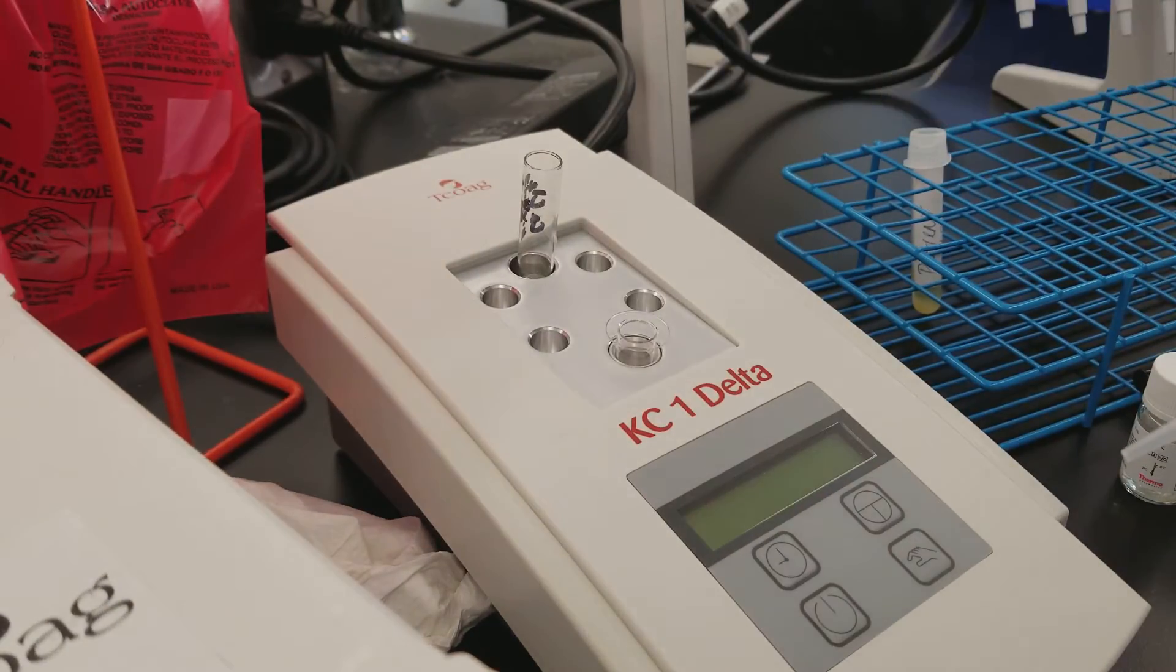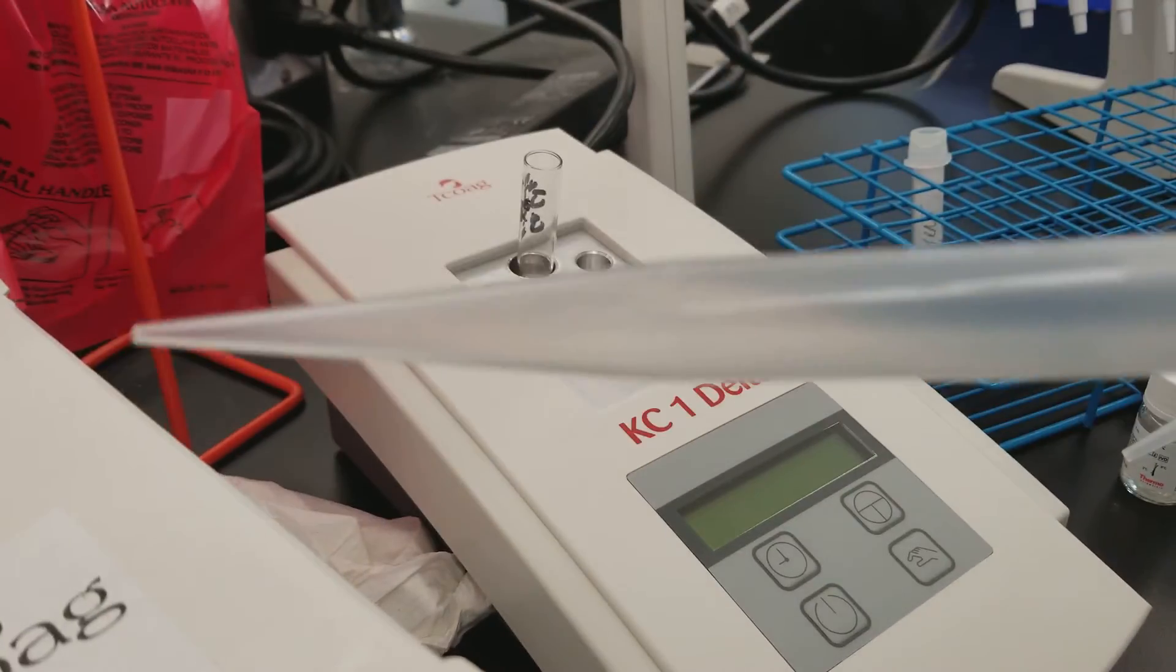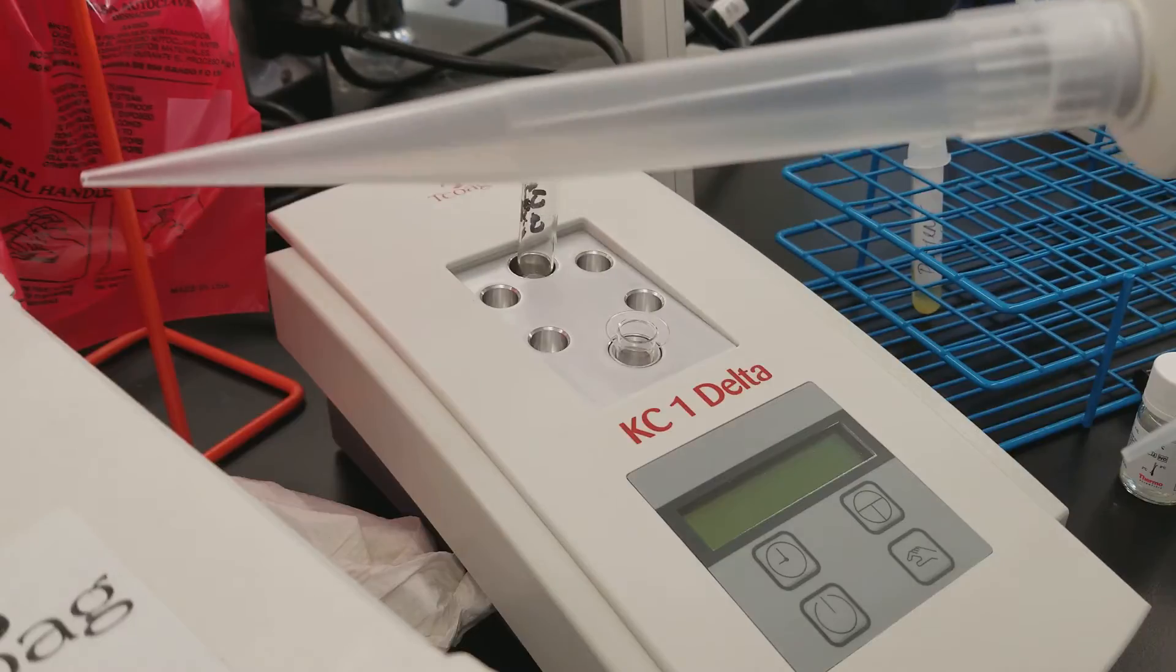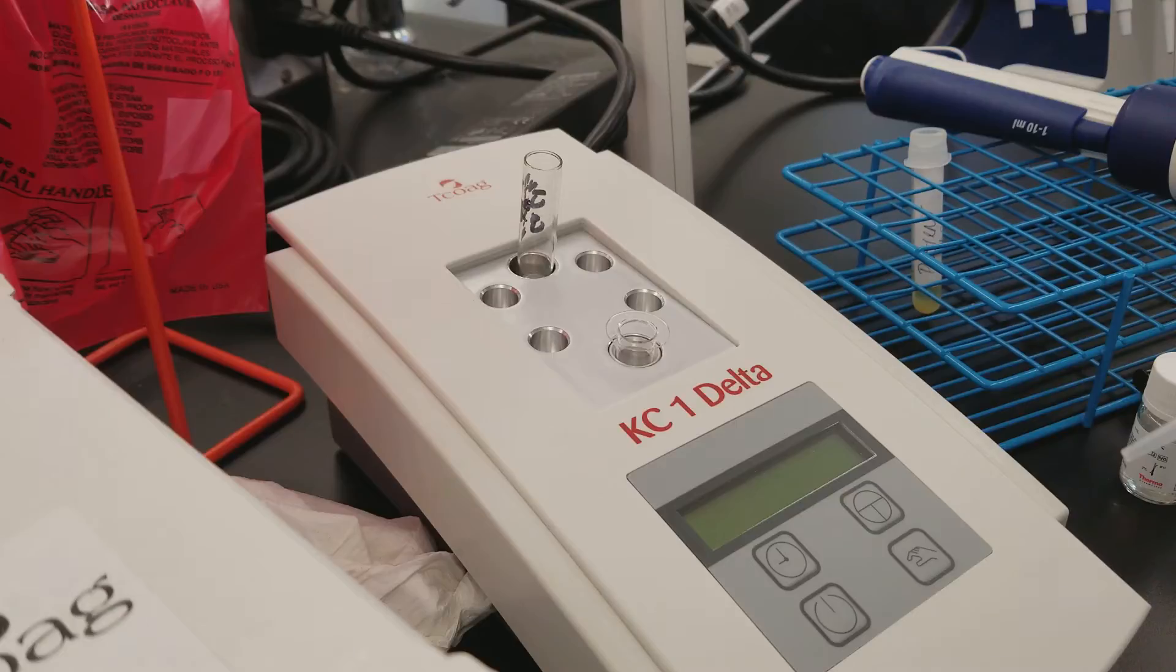I set my pipet to four milliliters, and it's got this really big pipet tip. You don't want to use your microliters, so make sure you're using the right ones.